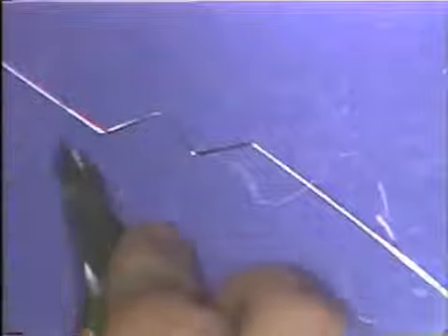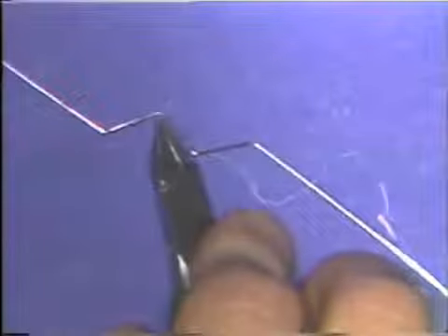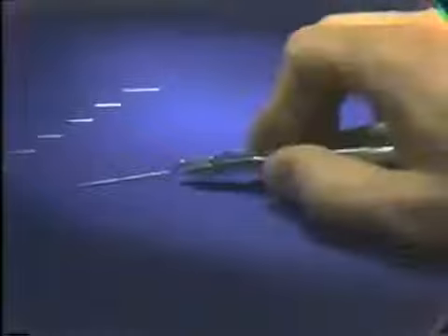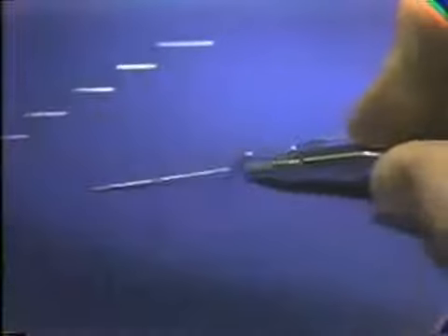The portion of the wire that was flat originally up to this pencil line is now off the table. You know that your wire was flat up until the point where you made the pencil mark. To correct this, you simply go back and remove some of the bend that you just put in.